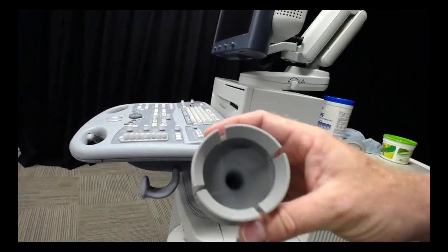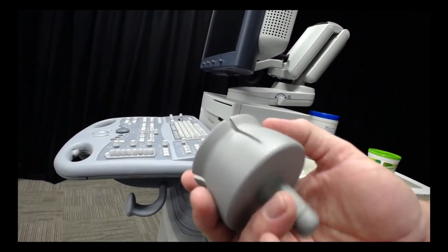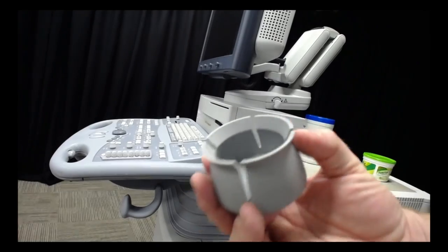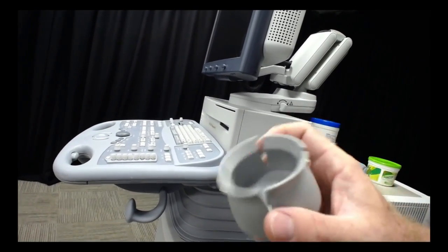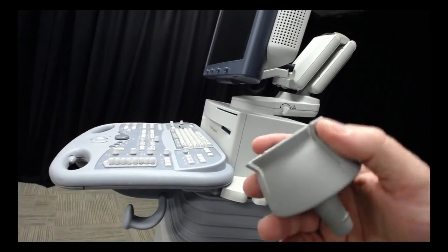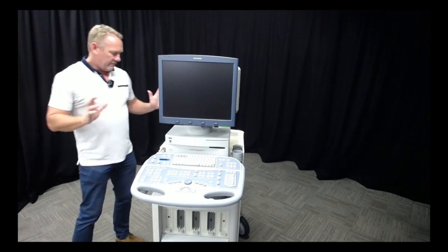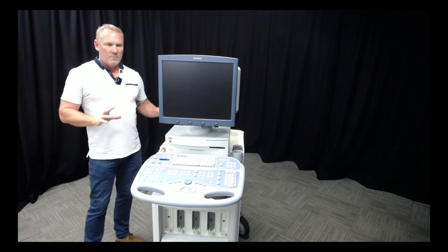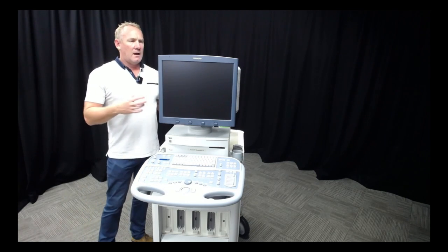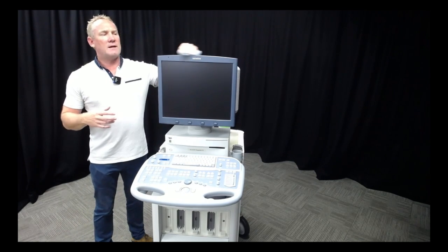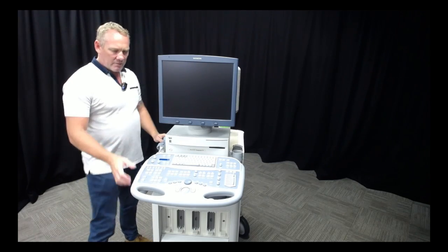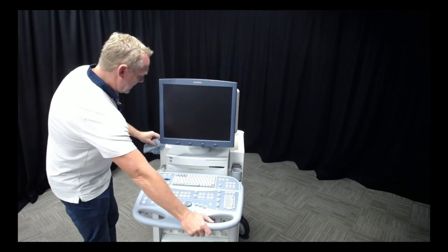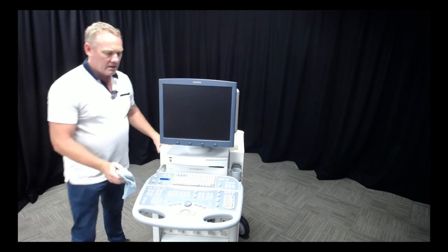Here's the gel holder we saw last week that was really disgusting. That's been cleaned up nicely, got all the old gel out and given it a proper clean in boiling water. As I go around the machine I'm looking for all the different nooks and crannies where dirt, dust, and bacteria can hide.